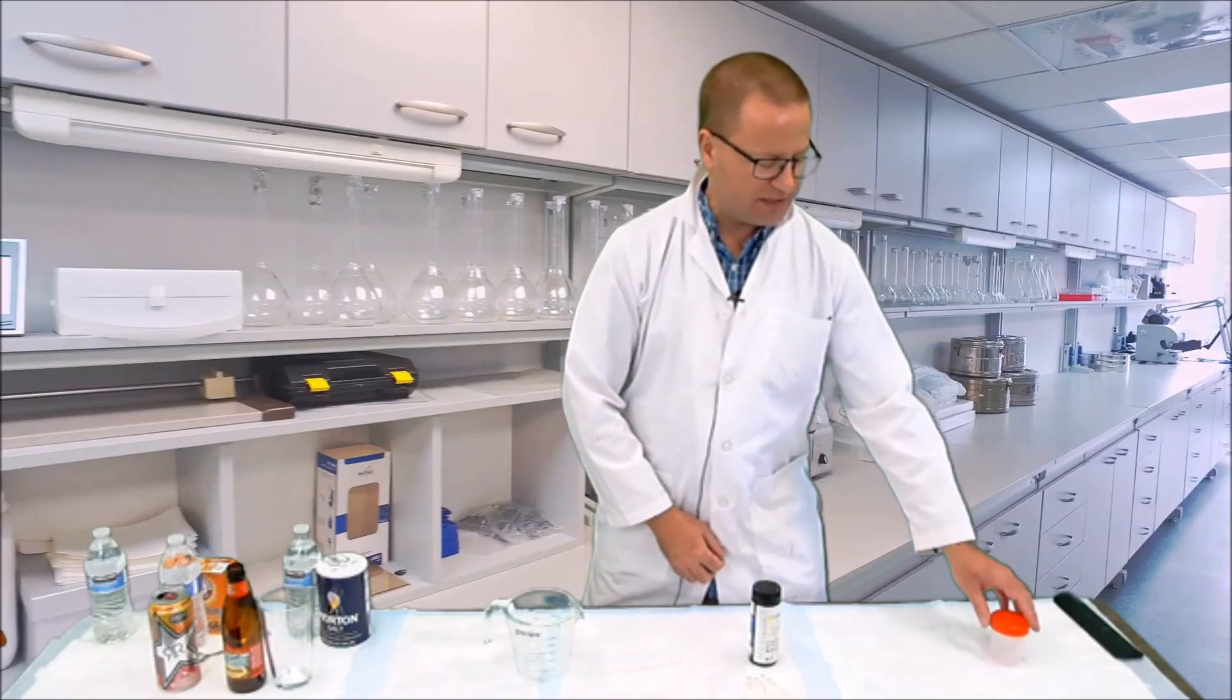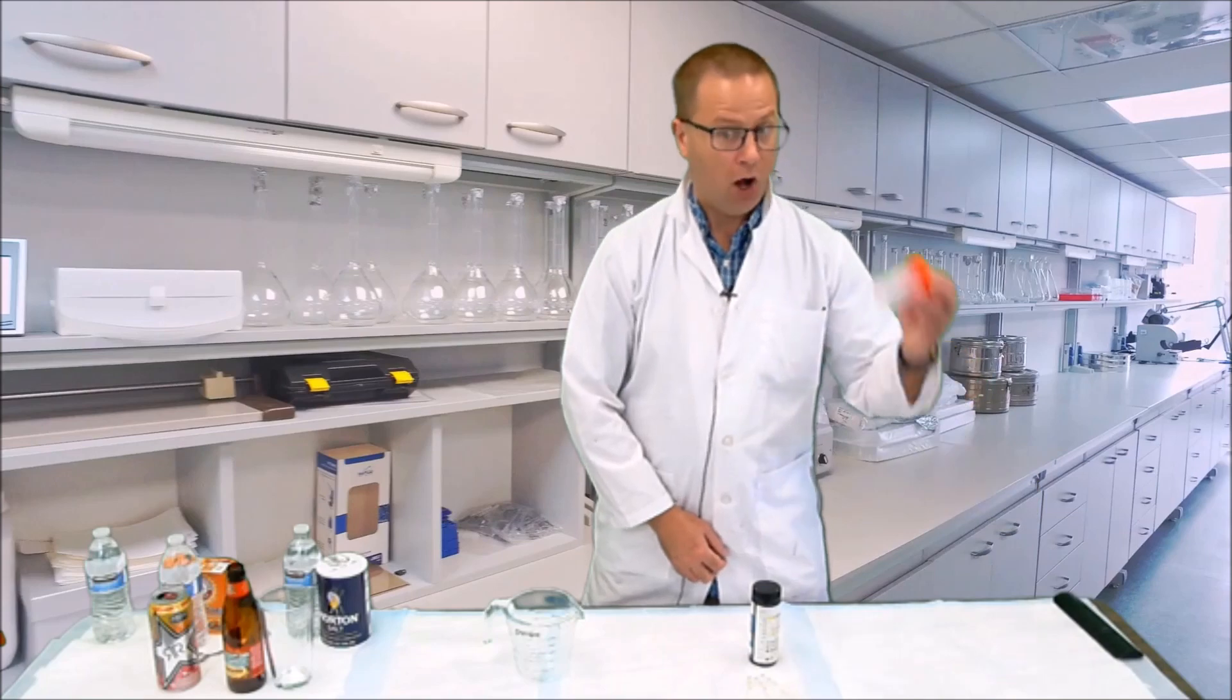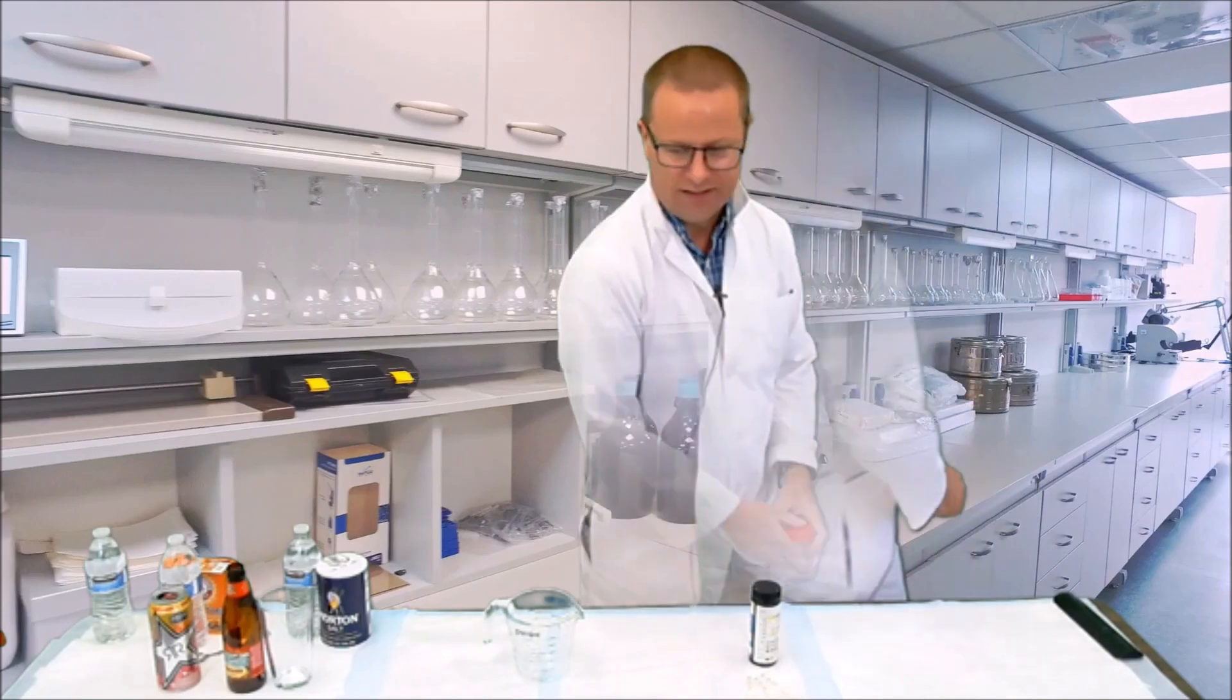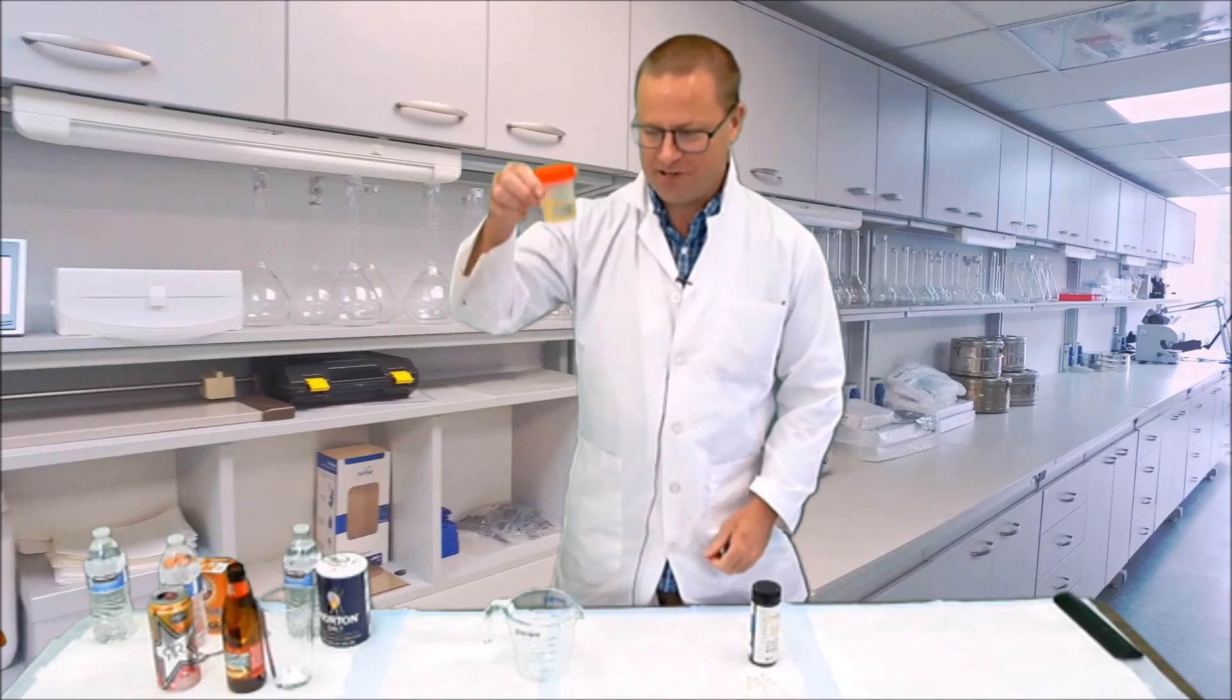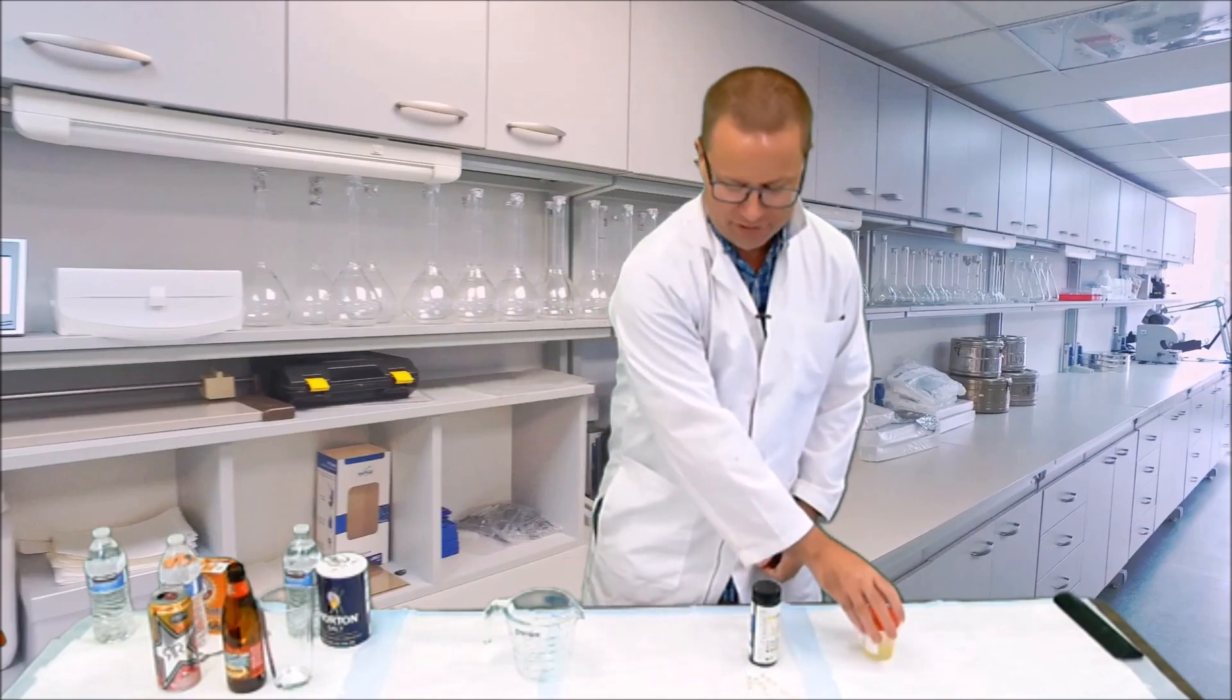And finally, you will need a specimen of freshly voided urine. Oh, one second. There you go, fresh urine. All right, now we're ready to begin.